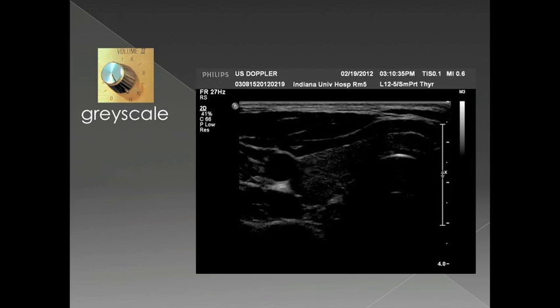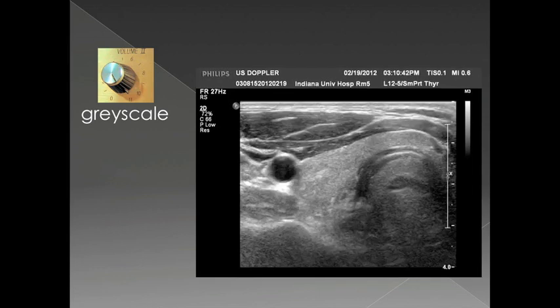For grayscale ultrasound imaging, gain really just changes the brightness of the image. You can see that for this particular image it's too black, so the gain is set too low. However, looking at this image of the same region in the same patient, the gain is turned up way too high — you might think there's something in the carotid artery or a clot filling the jugular vein, when really there's nothing there. The high gain is creating artifacts.